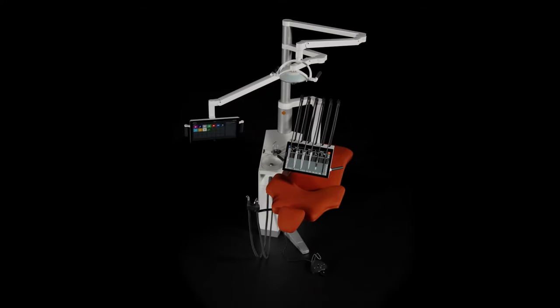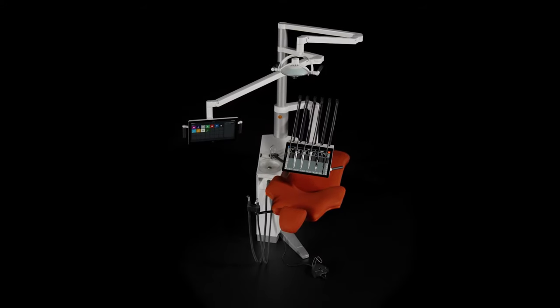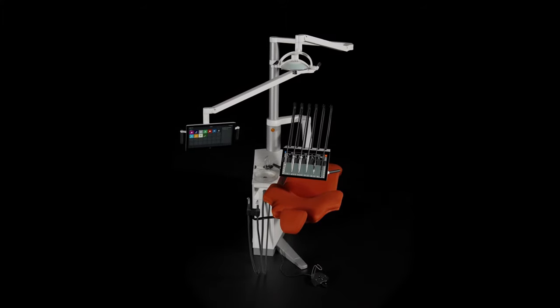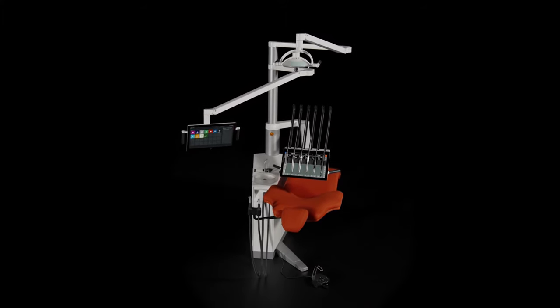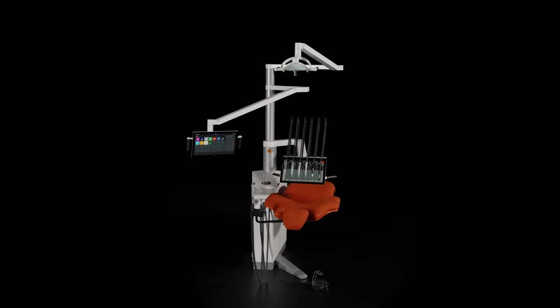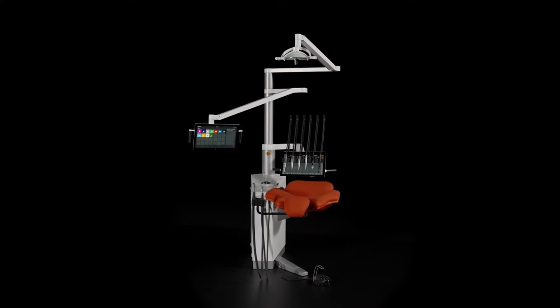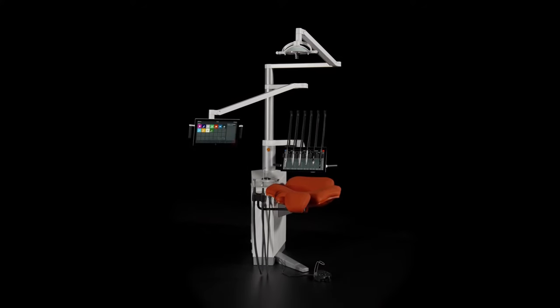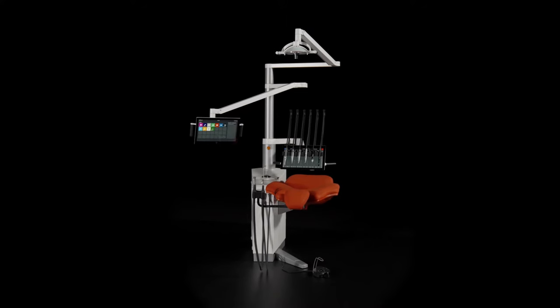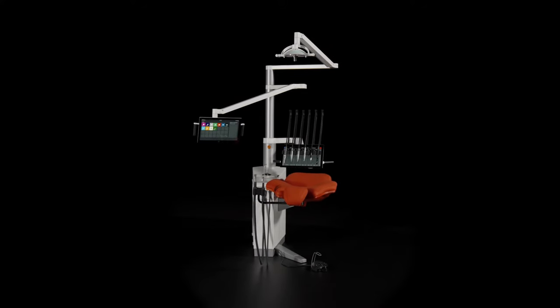The dental industry is undergoing a significant transformation as practices are becoming larger with many employees, and health authorities require standardized treatment protocols. To address these trends, and based on years of research and understanding of customers' needs, we've designed ExoFlow.